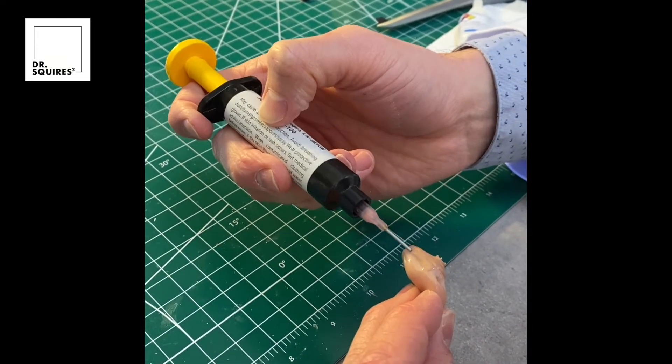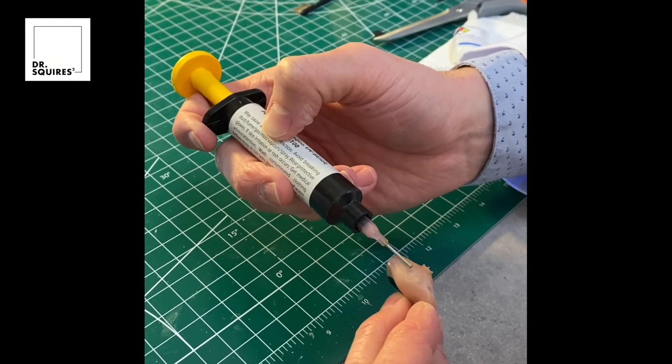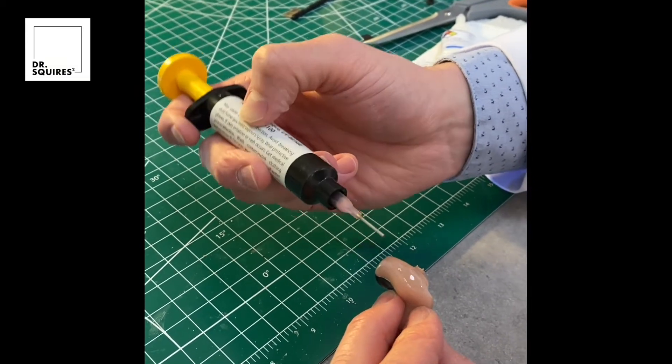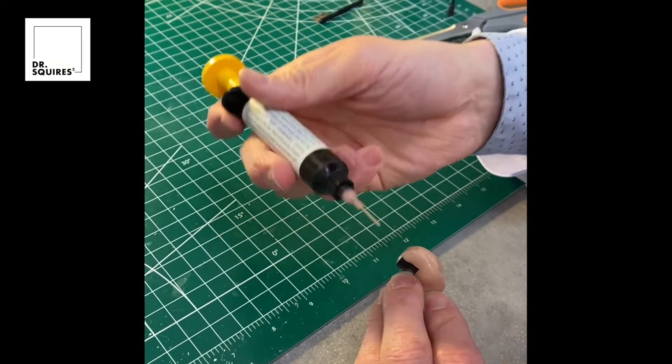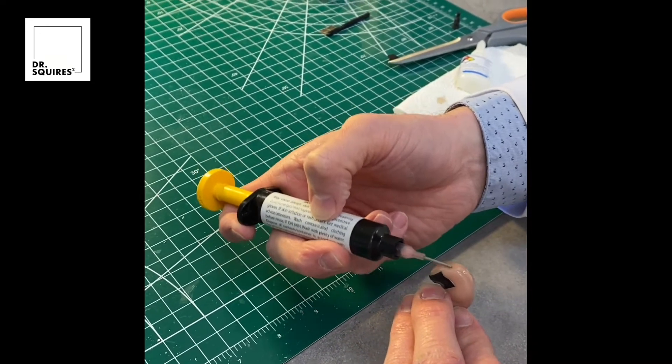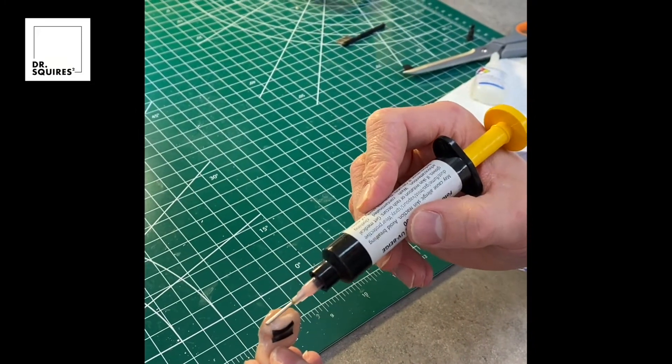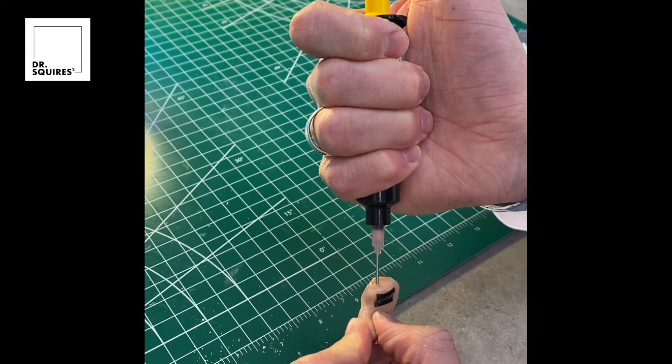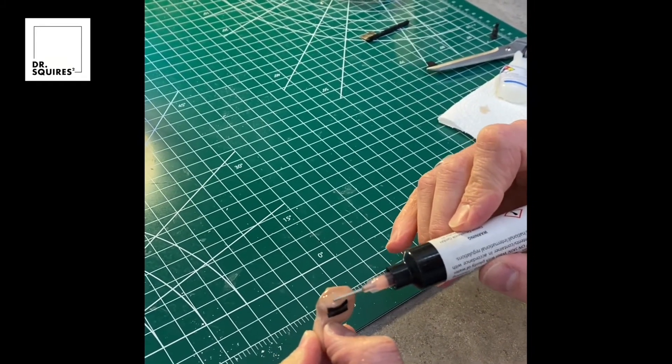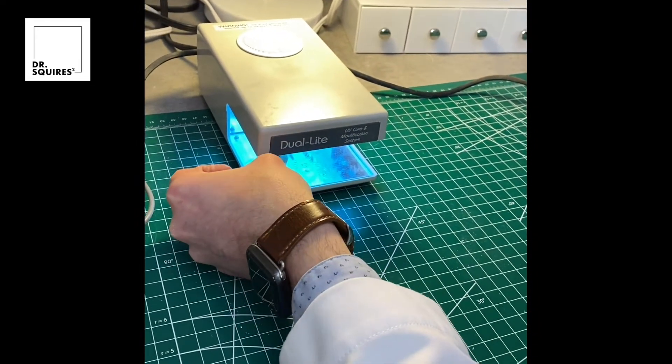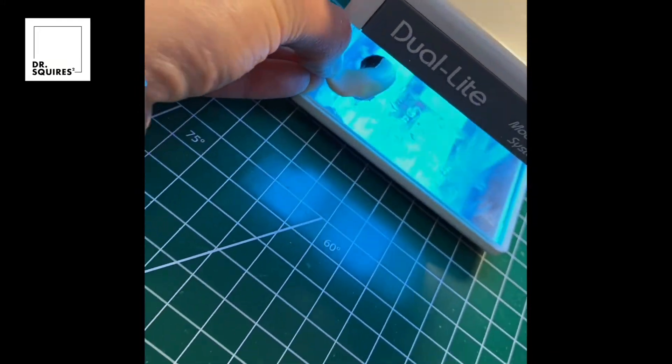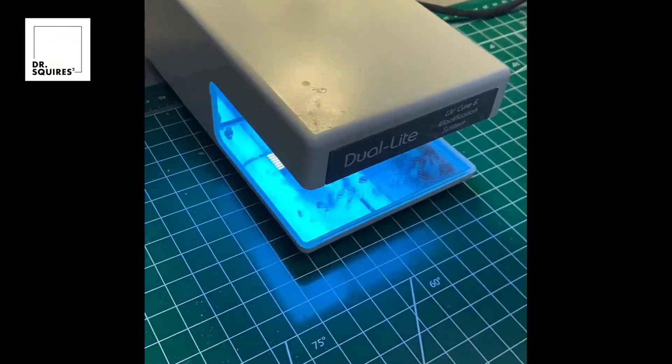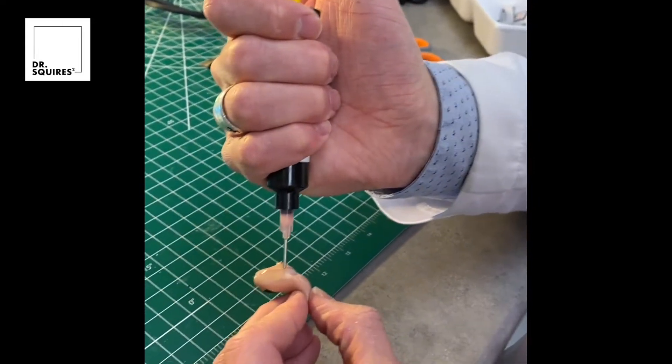I'll turn that syringe sideways and start just dragging that material over top of that roughed up area. This allows, it's almost like a footer on a building, it allows the material that's down in that crack to be anchored to the body of the hearing aid so that that face plate can't pull away easily. I'll just continue to pull that out and over the top filling in wherever needs to be filled, and then we'll put that in the UV light or UV oven to bake for just a couple seconds.